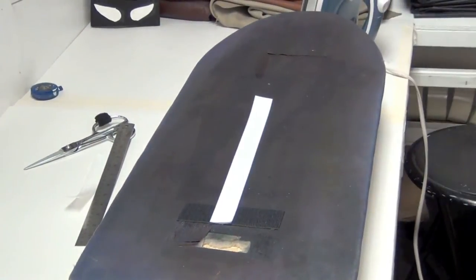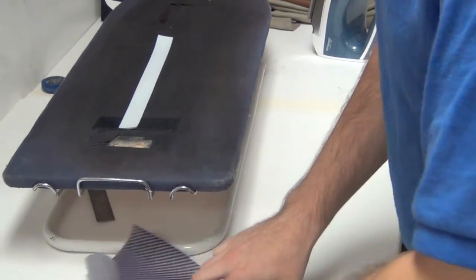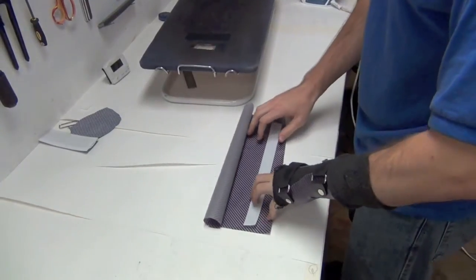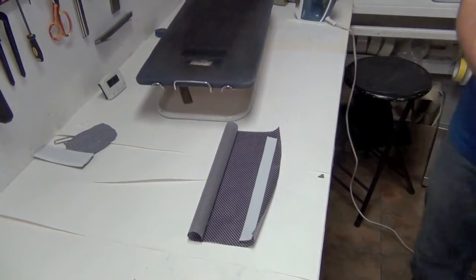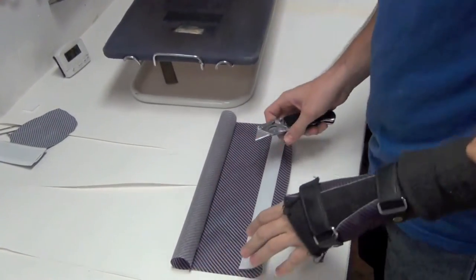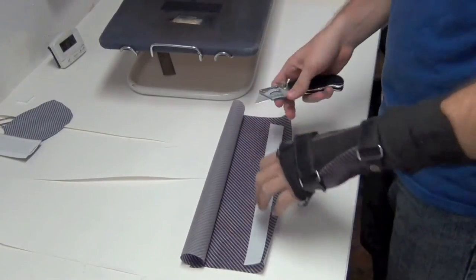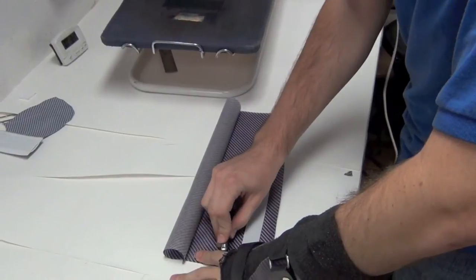Now, you're going to want to take your transfer paper and lay it out. You always want to cut it a little bit wider. You'll see in a minute why. As you transfer this loop velcro, it will tend to not only shrink, but it'll also warp either up or down, basically away from the center line that you have now. So you want to cut it extra wide.